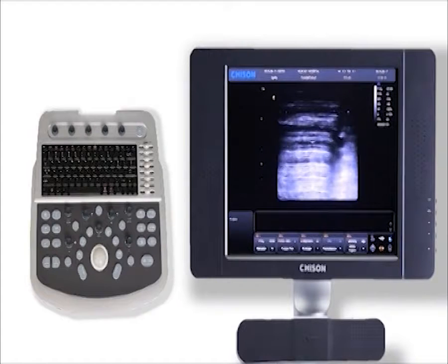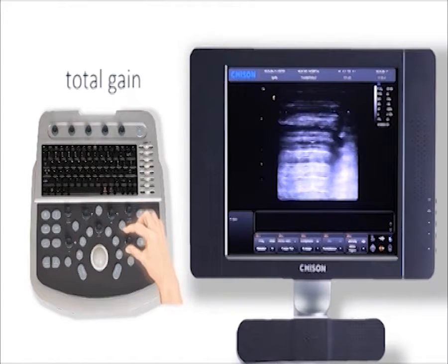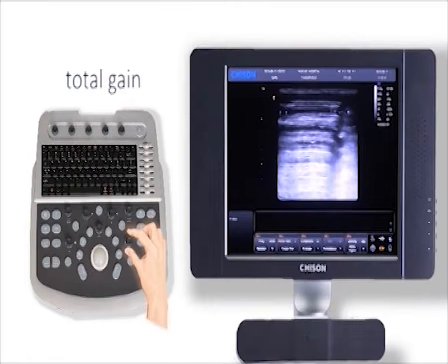In B mode, 4 parameters are the most important. They are gain, depth, frequency, and focus. Firstly, gain control consists of total gain and TGC. To adjust total gain, rotate the B knob to increase or decrease gain. Make sure the image is not too bright or too dark.